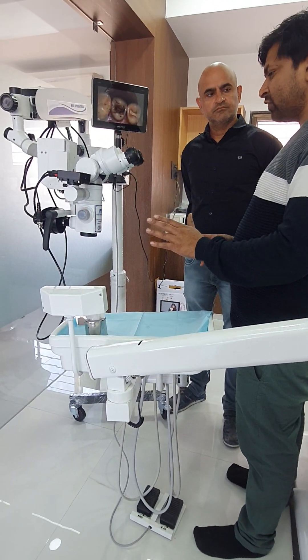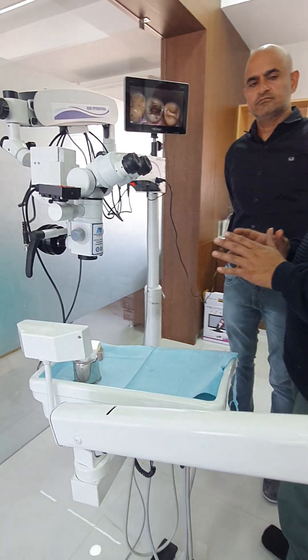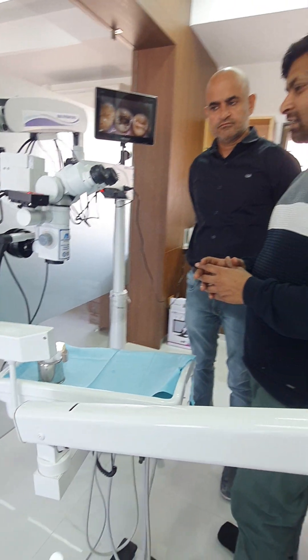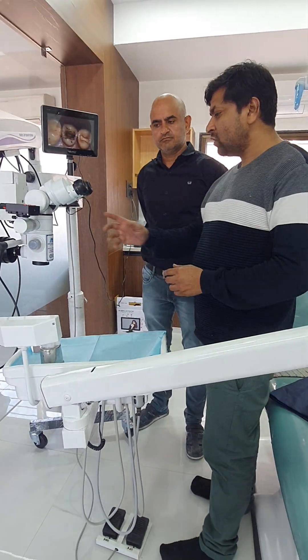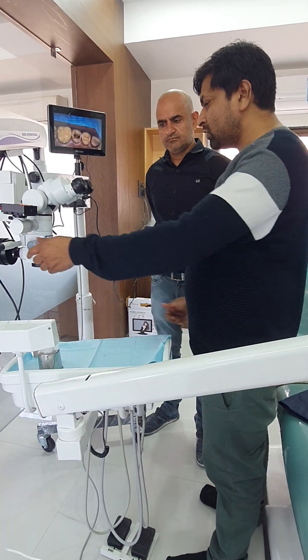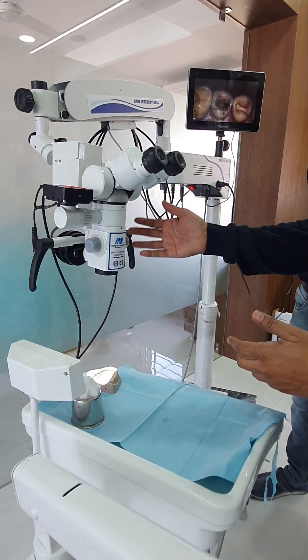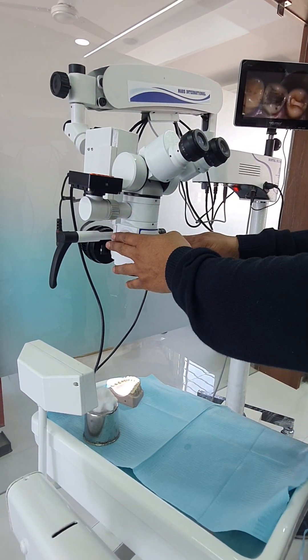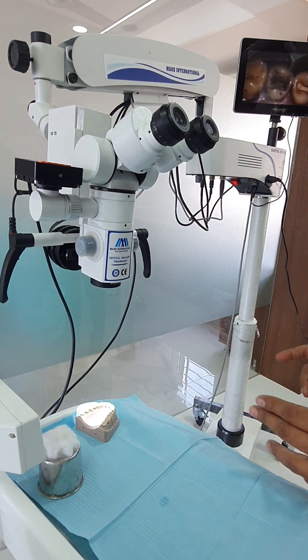It has 5-step magnification. The magnification levels are 4x, 6x, 10x, 16x, and 25x. You can change the magnification from both sides. This is the knob to change the magnification.